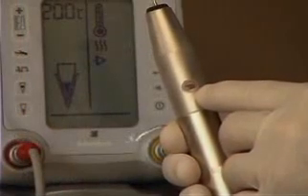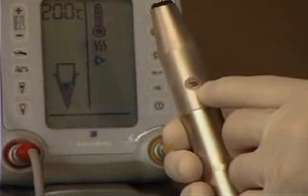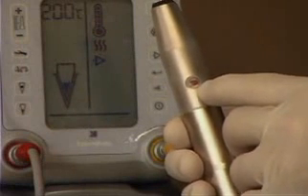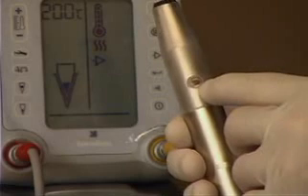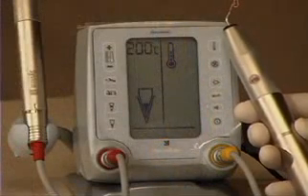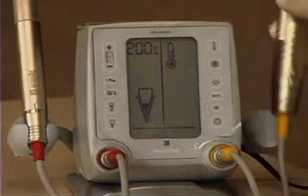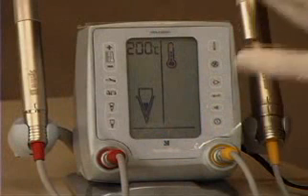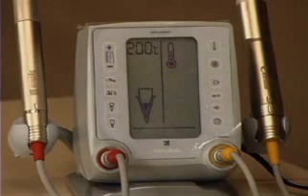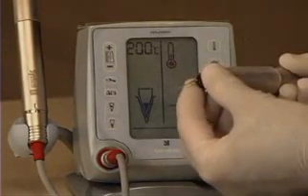There's the equivalent of a fuel gauge on the backside of the extruder. Red equals gutta percha remaining in the cartridge. As it runs out and white takes its place, we can see it's closer and closer to empty. If the gutta percha runs out, the piston will automatically retract. If you want to replace the cartridge before it runs out, simply pushing this button will retract it and the needle can be removed.